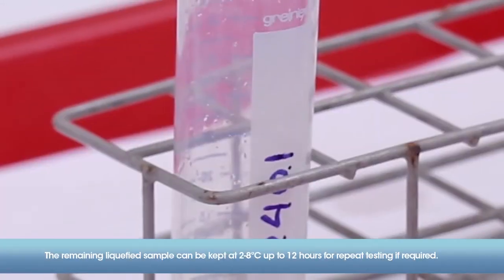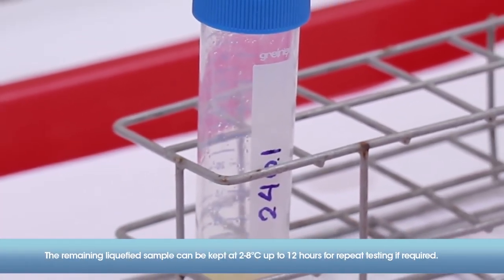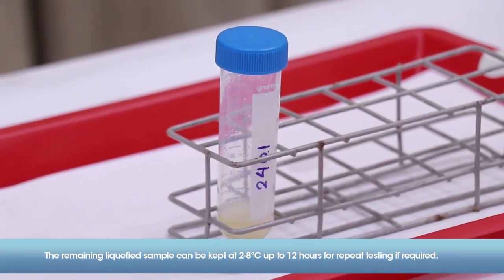Close the cartridge lid, making sure that the lid snaps firmly into place. The remaining liquified sample can be kept at 2 to 8 degrees Celsius until 12 hours for repeat testing when required.